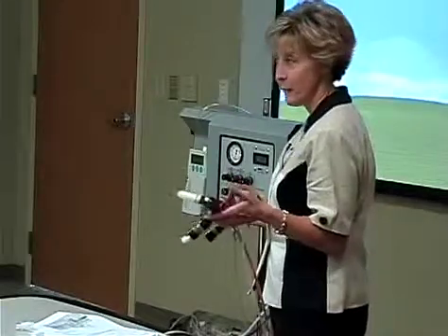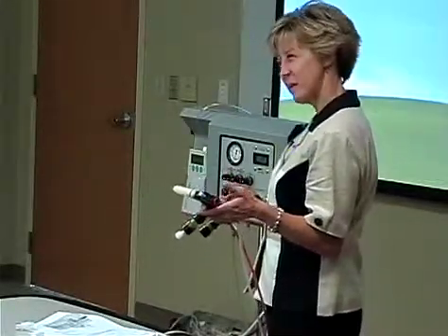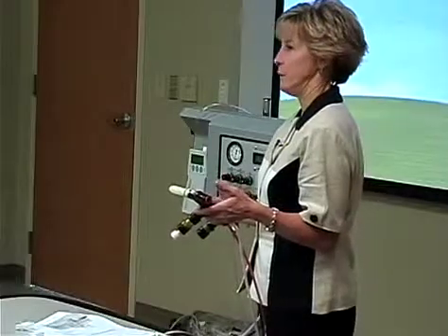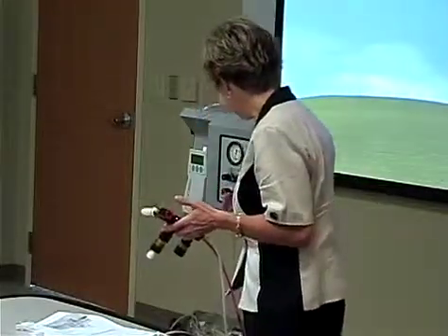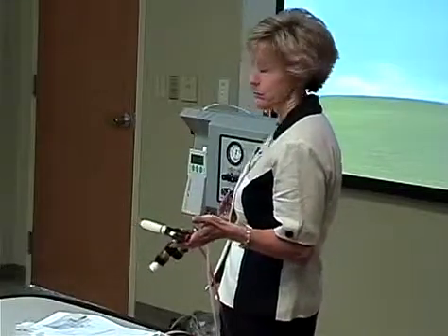Let's say we're on a 34, 36 weeker, going to be on mean of 12, getting a little bit sicker. So I want to open this baby up. I'm going to give him probably a little bit more than minimal bounce. Okay? And I'm going to start him on a hertz of around 8. And I'm choosing 8. Let's say he's got diffuse alveolar disease, he's a bigger baby, and with my experience, I'm going to start him on 8.